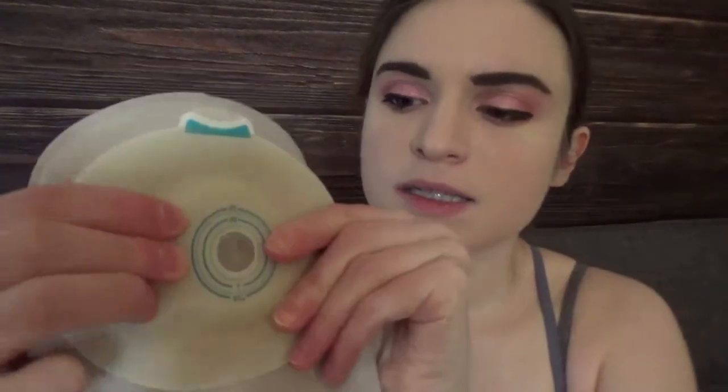It's really an individual, case-by-case decision, but these are the general things to keep in mind about the difference between flat versus convex bags. Convex bags are a little bit better for people with rounder bellies — it makes it easier for the stoma to be surrounded by something rigid. Convex bags have a little more structure to them, especially in Coloplast products, whereas the flat bag is really flexible and great for people who don't have any herniation or bumpiness on their tummy. For people with rounder bellies, hernias, etc., a convex bag might be better — it provides more structure and more leak protection for your stoma.